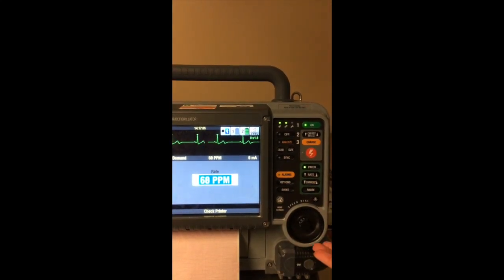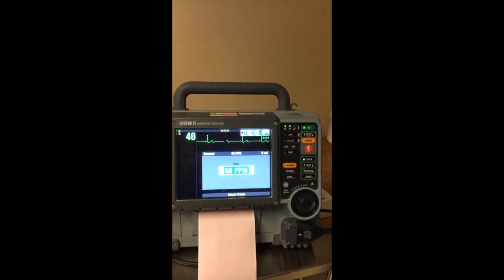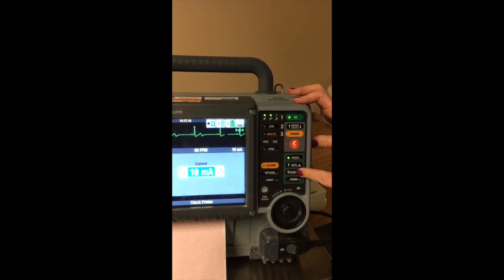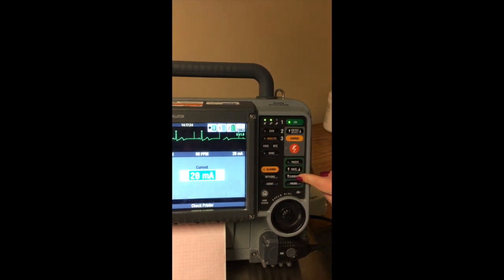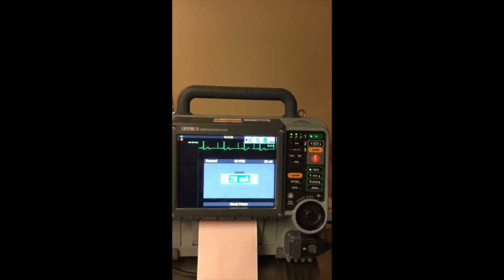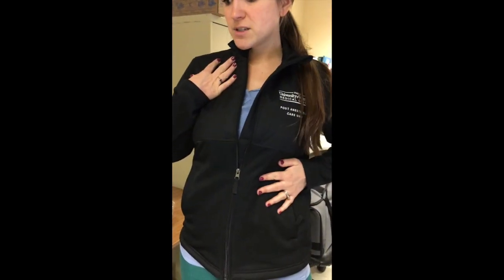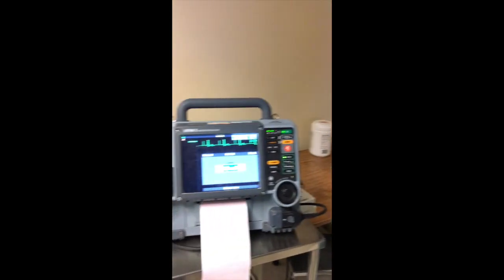So that's where we want to go, but we're still at a rate of 40. So the next thing is you have to increase your current or your amplitude. So give it energy essentially. So I increase this. So this kind of pacing is called transcutaneous pacing. So the pacer pads go anterior to posterior. And it does work if you put your pacer pad to the top right and to the bottom left. It will still pace somebody, but the optimal position is anterior to posterior.